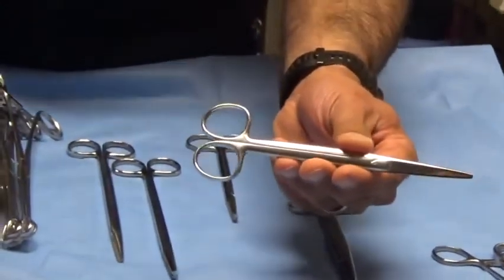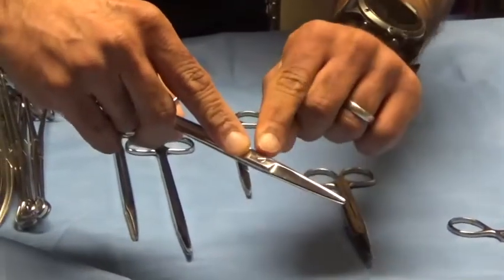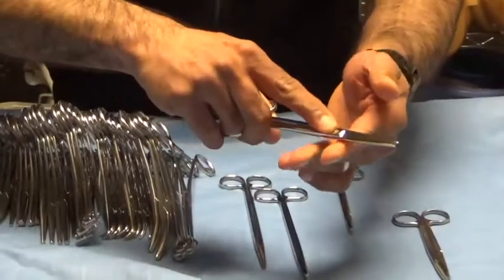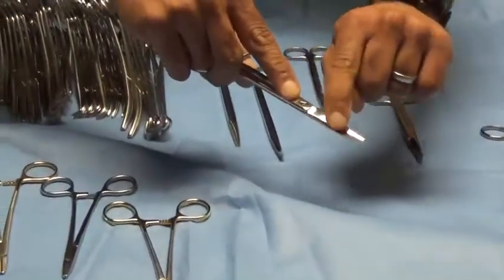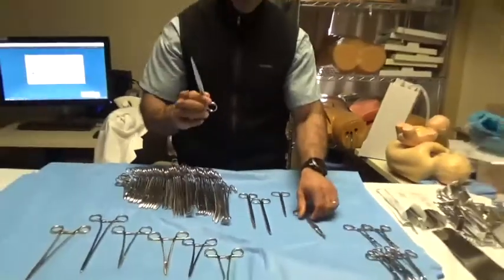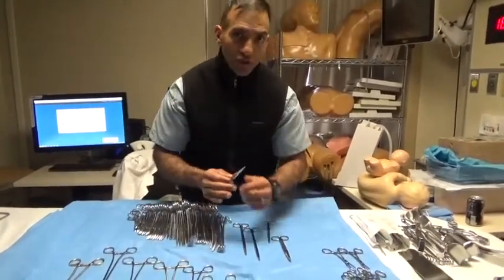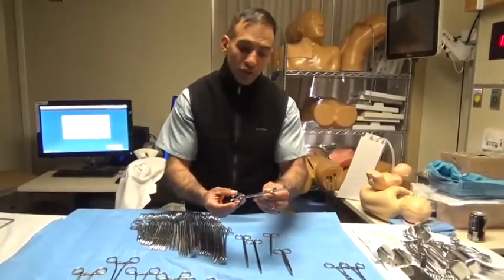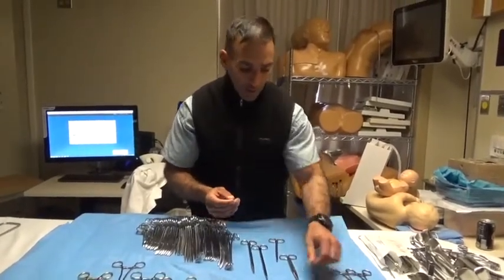These instruments are designed for your ring finger in one hole and your thumb in the other. With scissors, we always try to keep the bolt facing up because that's where friction between the tines is mediated. Placing your index finger over the bolt, with ring finger and thumb in the handles, lets you exert maximum friction between the tines. Even with dull scissors you'll be able to cut suture. As a medical student, just accept that suture cuts will always be too long or too short.